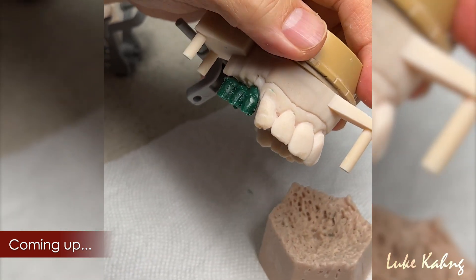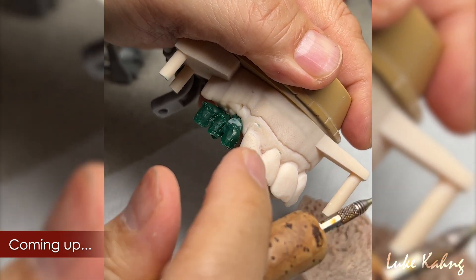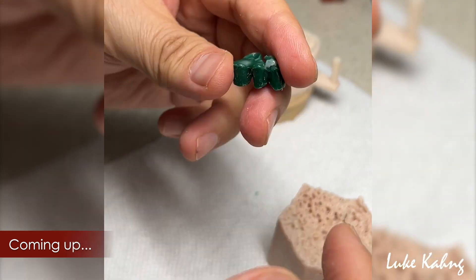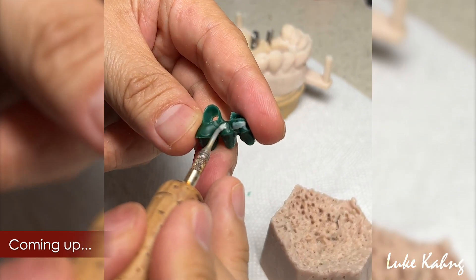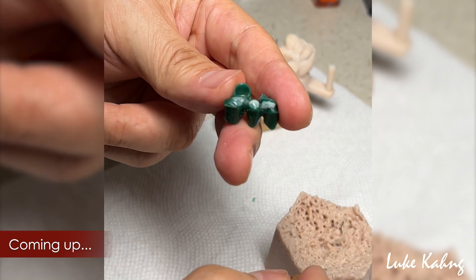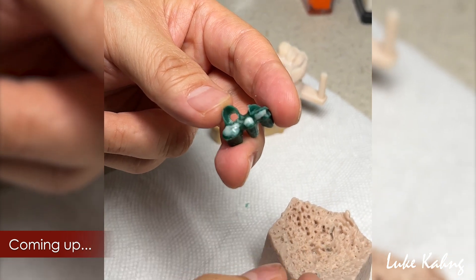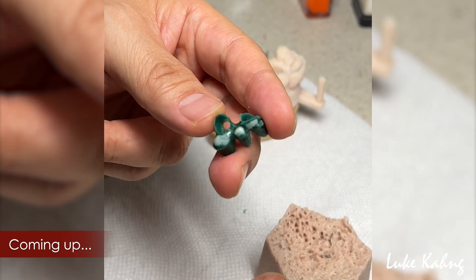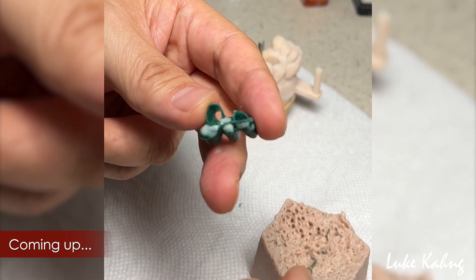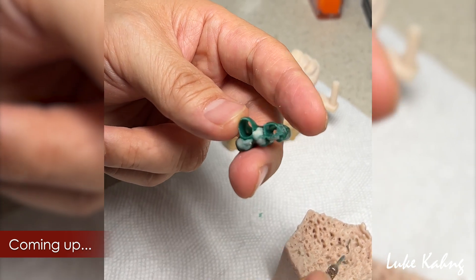So I have to add a little bit more thicker here, so I don't get any huge discrepancy in between the teeth — especially the coefficient. Whenever I add with the metal, I don't want to see any huge room. If I make a big room, then porcelain cracking.